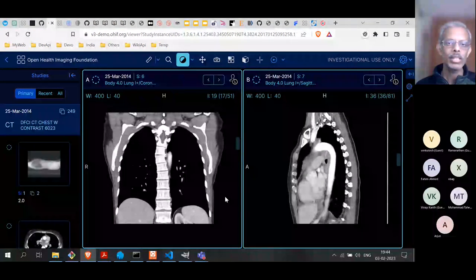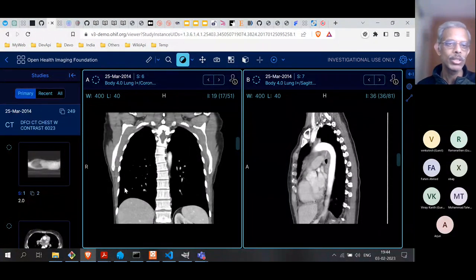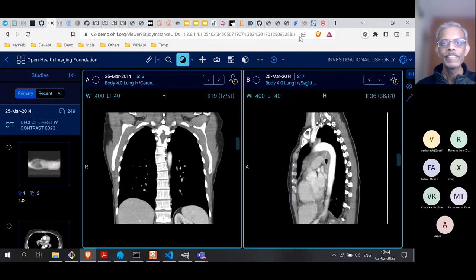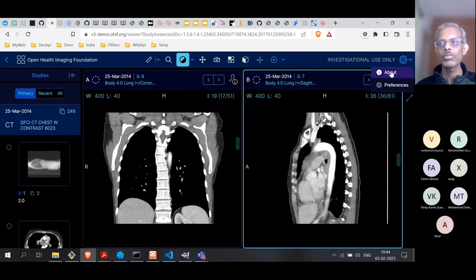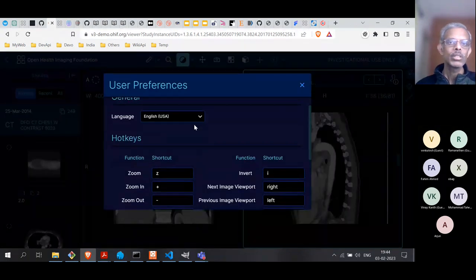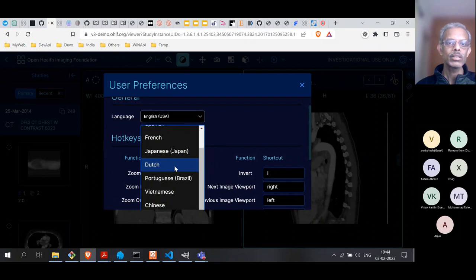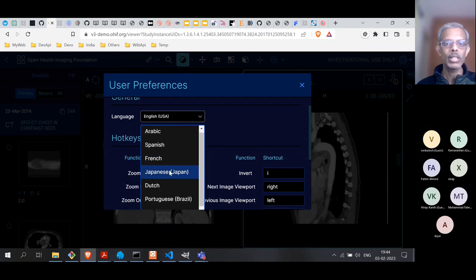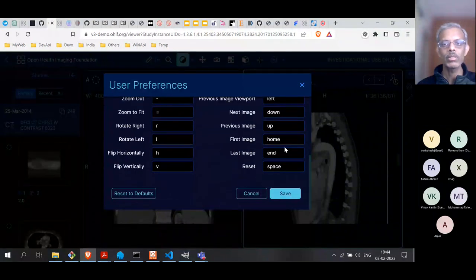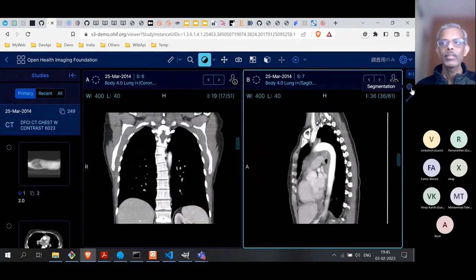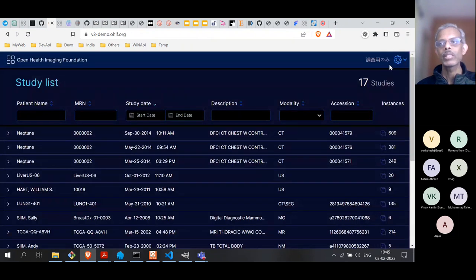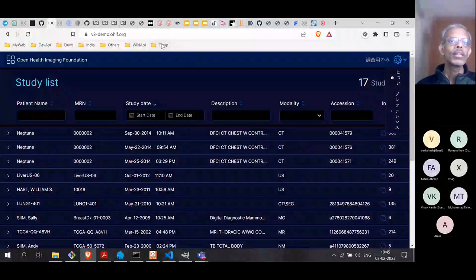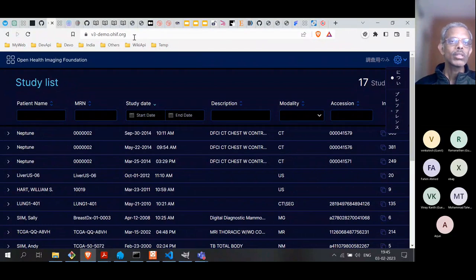There is a lot of performance-enhancing technology being used under the hood. Here you have information about the software preferences. You can select to view this package in some other language. For example, if I put Japanese — okay, so the menu here has changed. Most of it is the same except for the menu. Things are different, as you can see. So this is what is already hosted on the web.